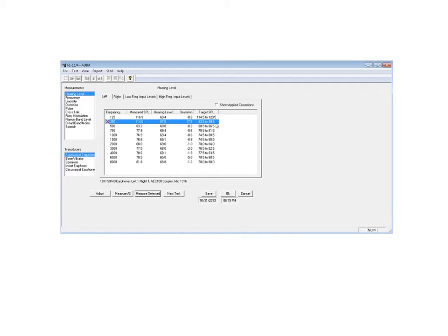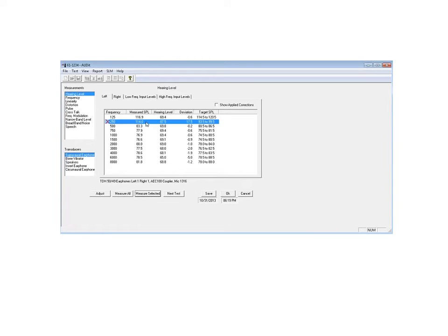In this case, the calibrator is over the microphone, which is telling me that the calibrator and the microphone and equipment connection is good as I'm coming in with the 114 dB level for troubleshooting. We can go down to next test.